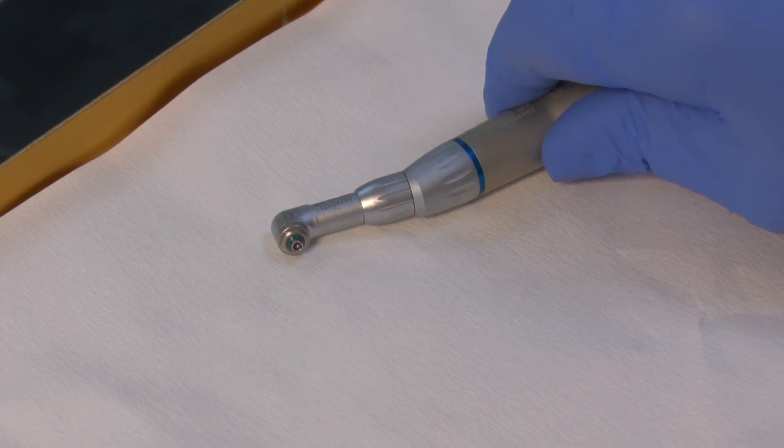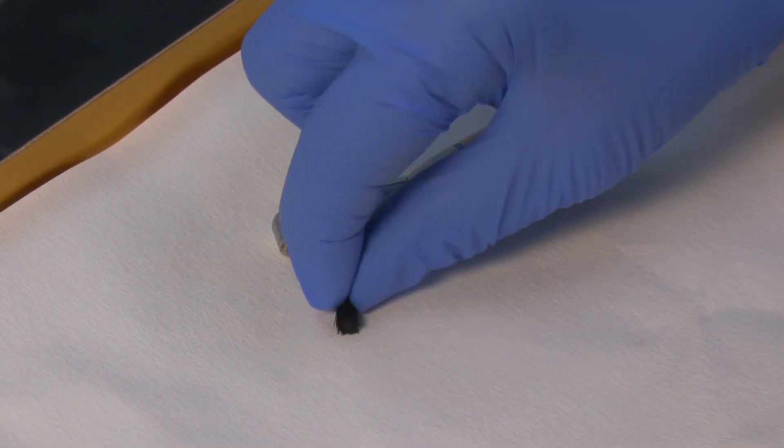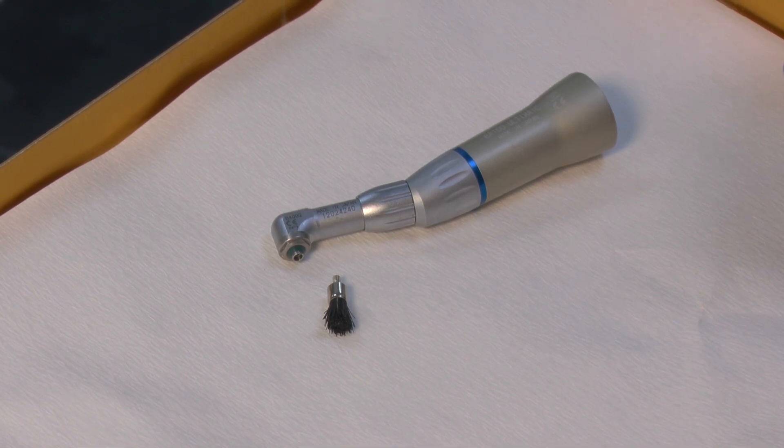A better handpiece has a screw fitting and the brush goes into the screw. A flat black brush is ideal for cleaning lower anteriors where they're rather overcrowded, because it doesn't splay out onto the gum tissue but cleans the flat enamel.